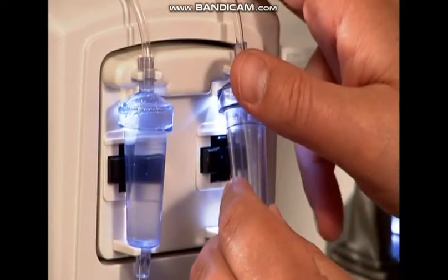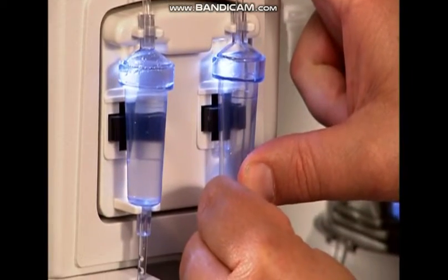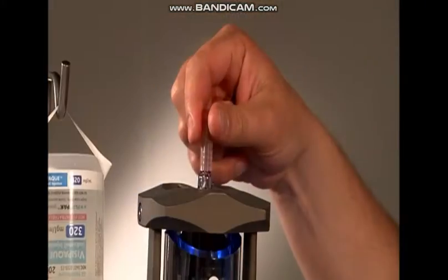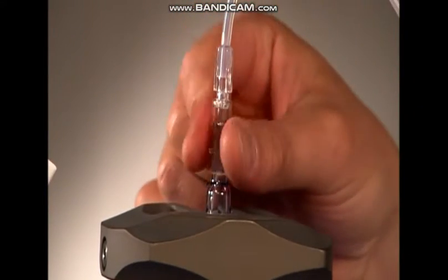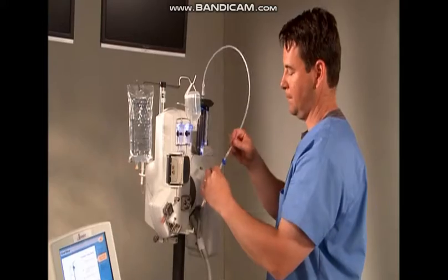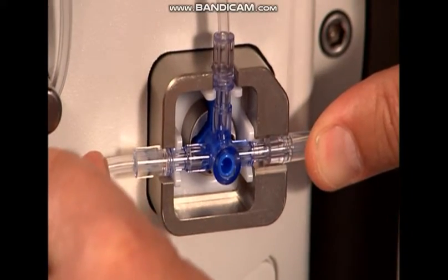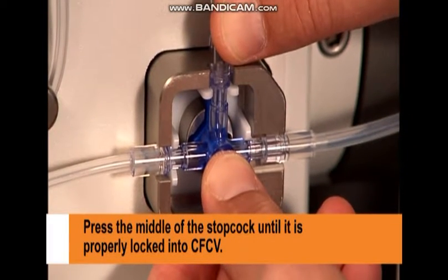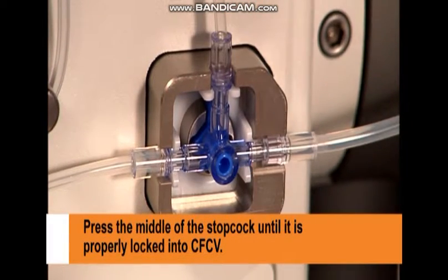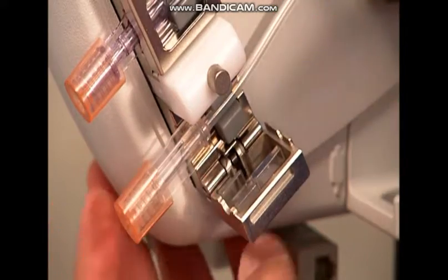Step 1. Install the contrast drip chamber. Step 2. Connect the tubing to the syringe. Step 3. Install the stopcock into the contrast flow control valve. Press the middle of the stopcock to ensure that it is properly locked into the CFCV. Step 4. Insert the tubing connector into the gross air detector and close the door.